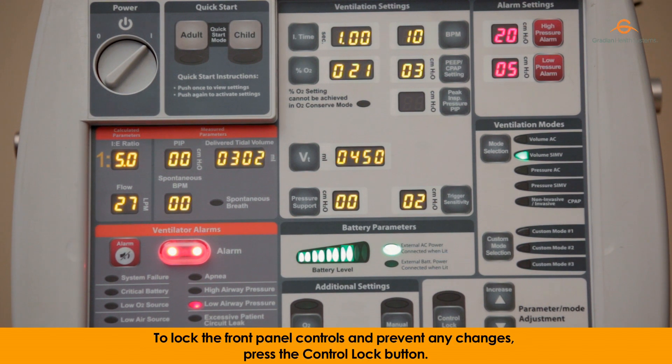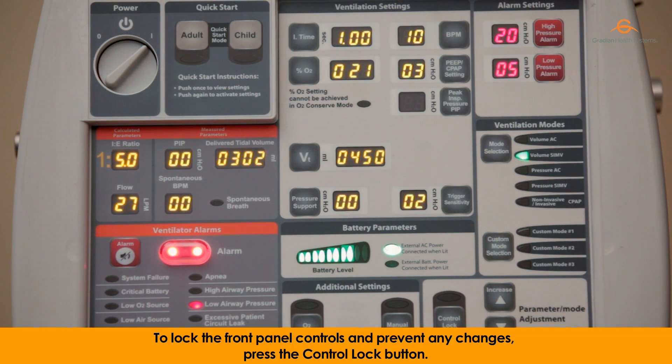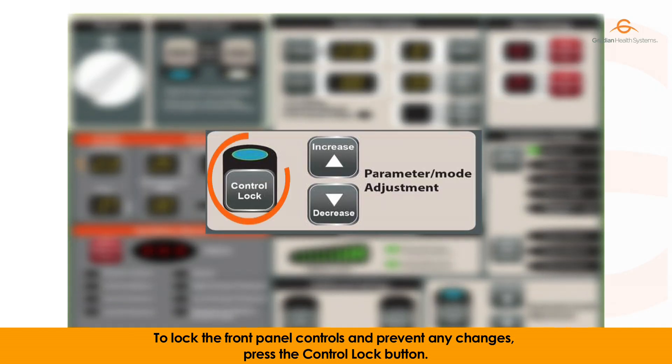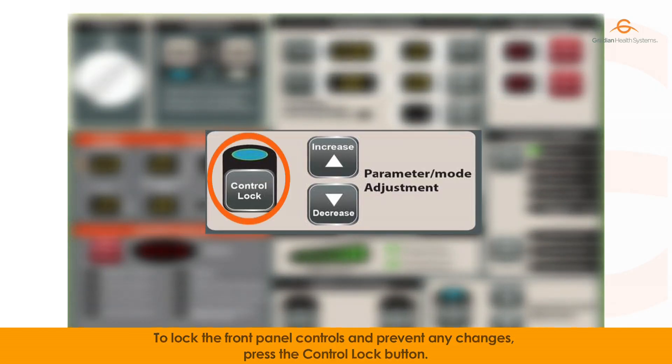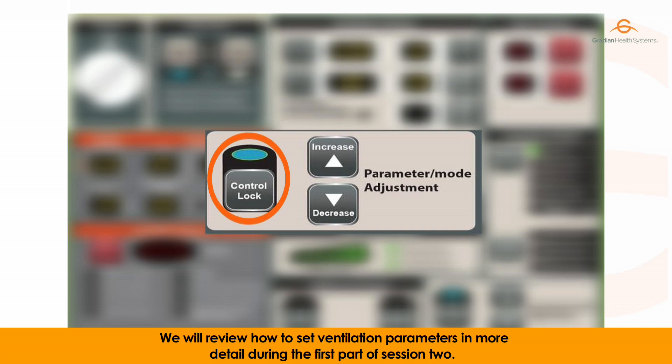To lock the front panel controls and prevent any changes, press the control lock button. We will review how to set ventilation parameters in more detail during the first part of session two.